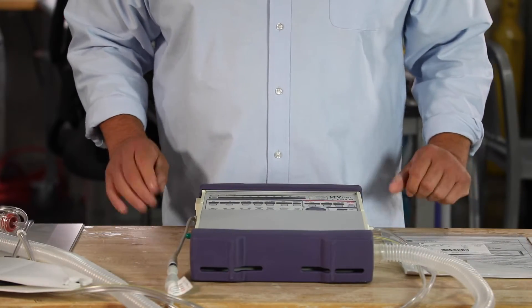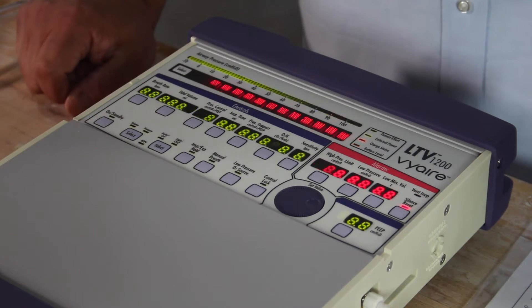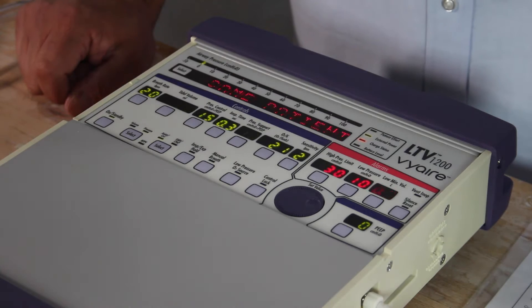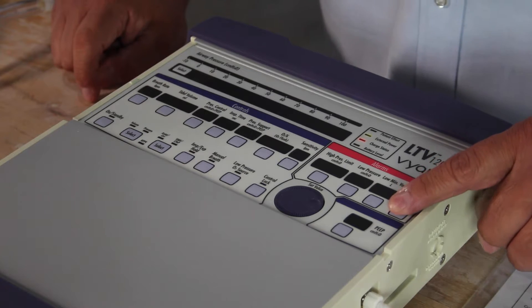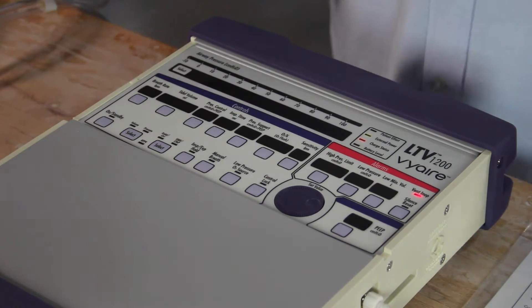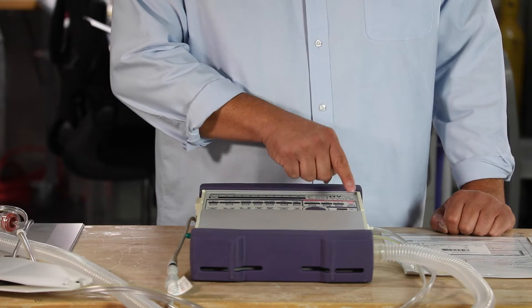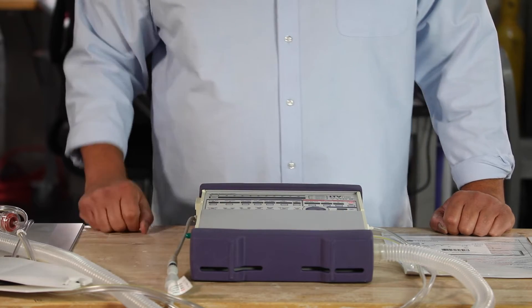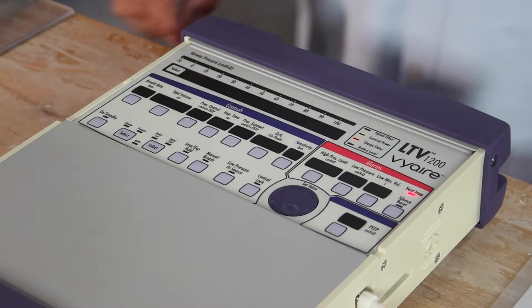Turning the ventilator on and off, simply press on. One press of the button on standby, the ventilator turns on. Turning it off, for safety purposes, you can't press once and it won't shut off. You have to hold the button down three to five seconds for it to shut off. The silence reset is our safety, making sure we really want to shut off the ventilator.